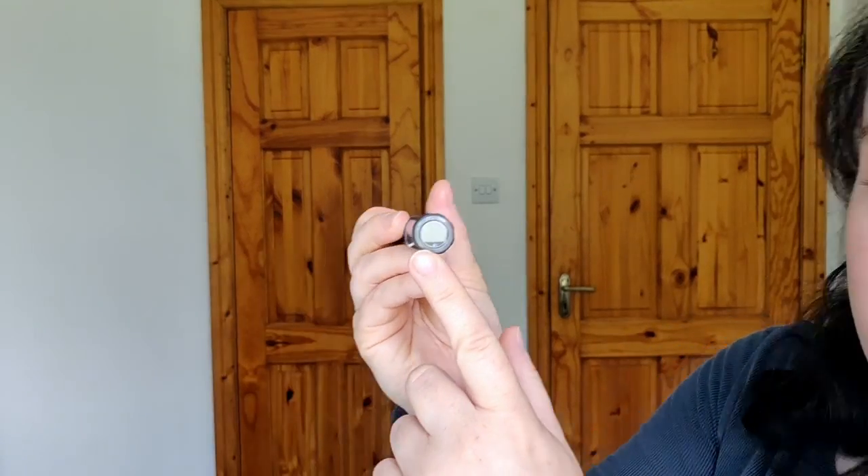The Novo pen Echo was released in 2010, and I feel like I've had that style of pen for around 10 years — which shows you how good it is. The Novo pen Echo was released for half doses, and the Novo pen 5 is the full-dose equivalent. The big game-changing feature on both of them is the memory display function. Up to this point, there was no memory — but now, if you press into the bottom of the pen, you can see the last dose taken and a clock display showing how long ago it was, with a 12-hour memory capability.